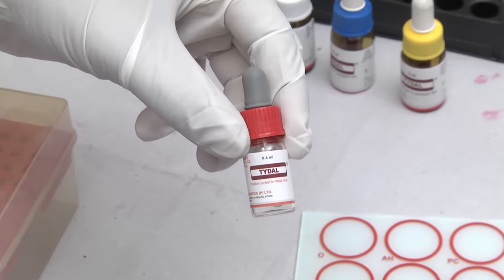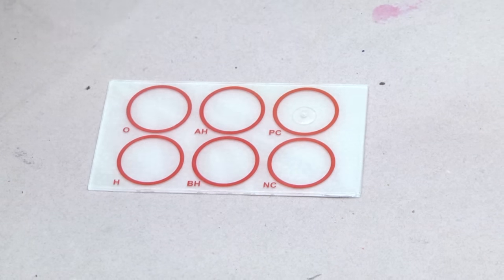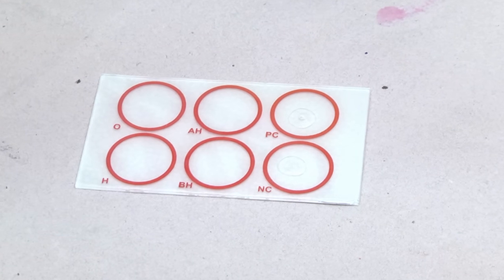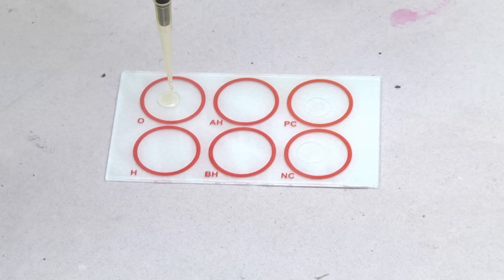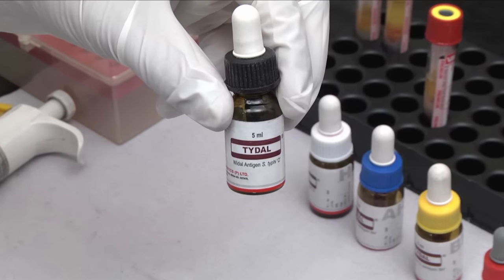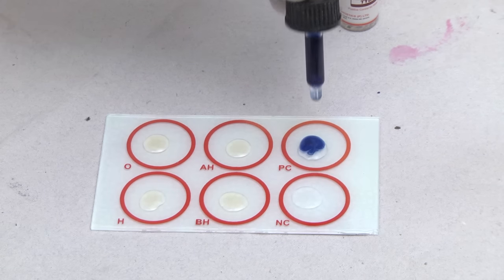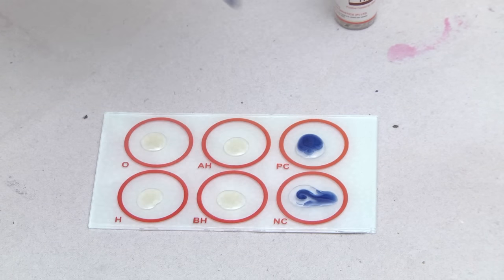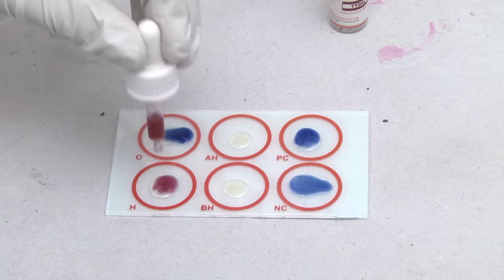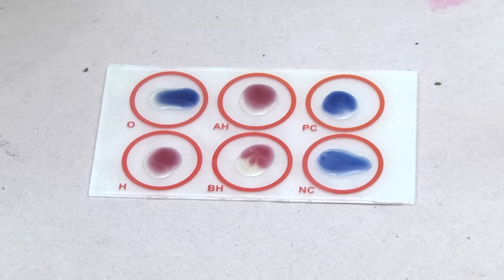Slide screen method: Place 1 drop of positive control onto a reaction circle of the glass slide. Place 50 µl of physiological saline onto the next reaction circle. Place 1 drop of patient serum onto each of the required number of reaction circles. Add 1 drop of O antigen suspension to the circles containing positive control and physiological saline. Add 1 drop each of the antigen suspensions — O, H, AH, and BH — to the reaction circles containing the patient's serum.